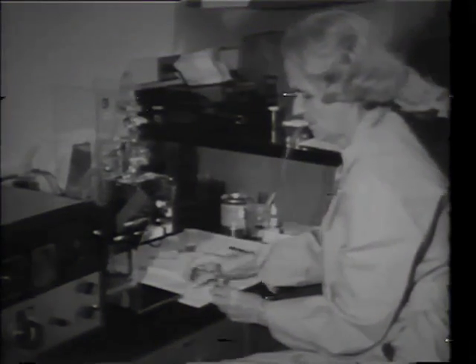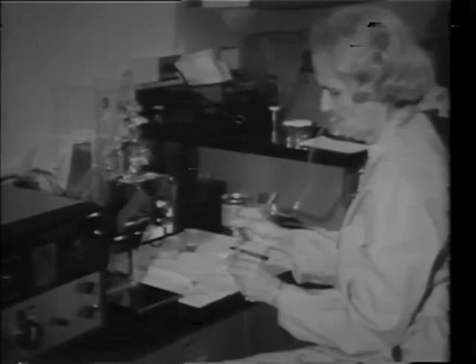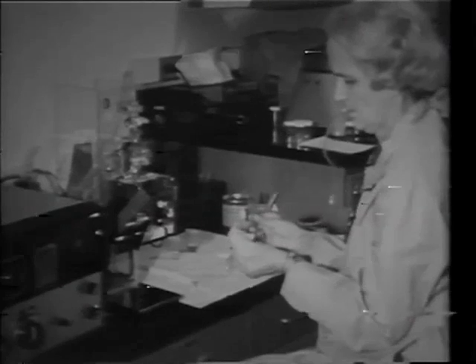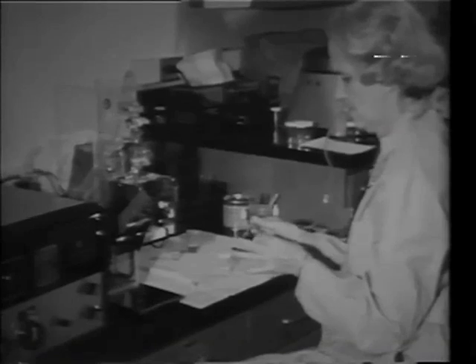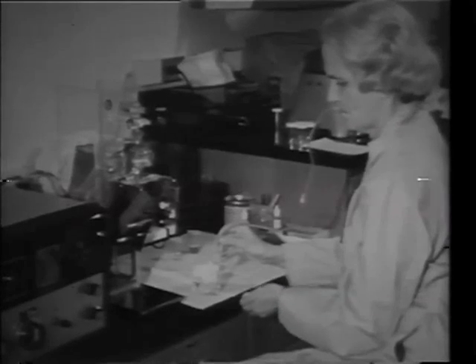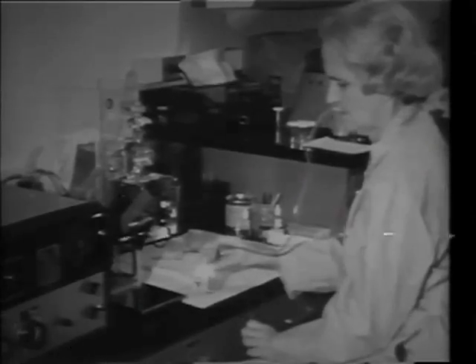As we watch the technician in the laboratory, we see that she is preparing a specimen of blood for the Coulter counter. In order to space out the particles for more accurate counting as they pass through the aperture and between the electrodes, a dilution of blood is required. She is measuring out a quantity of blood in the pipette and introducing it into an isotonic solution, which will retain the cells in good condition.